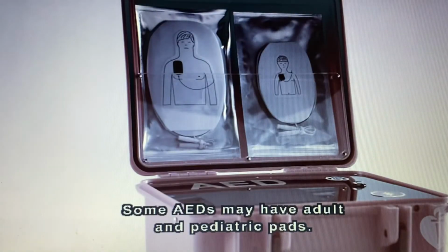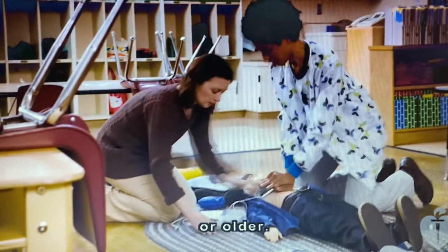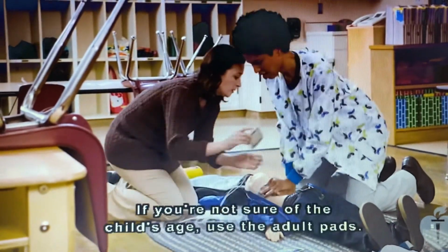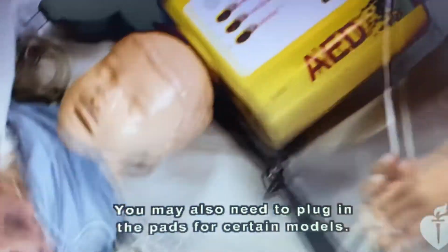Some AEDs may have adult and pediatric pads. Be sure to use the adult pads on anyone 8 years of age or older. If you're not sure of the child's age, use the adult pads. You may also need to plug in the pads for certain models.